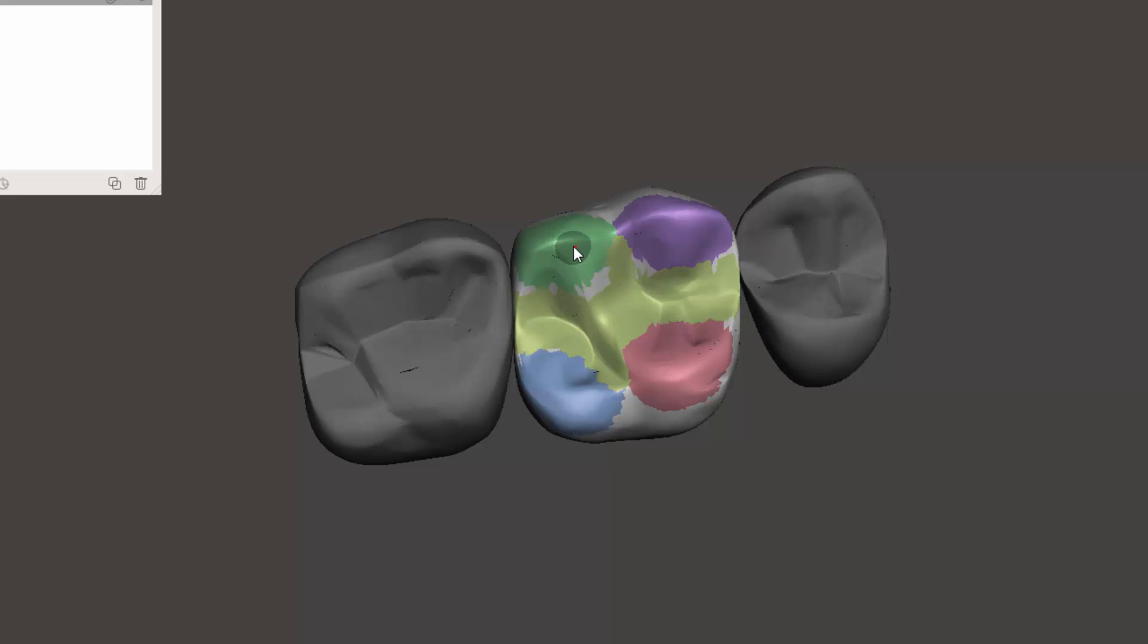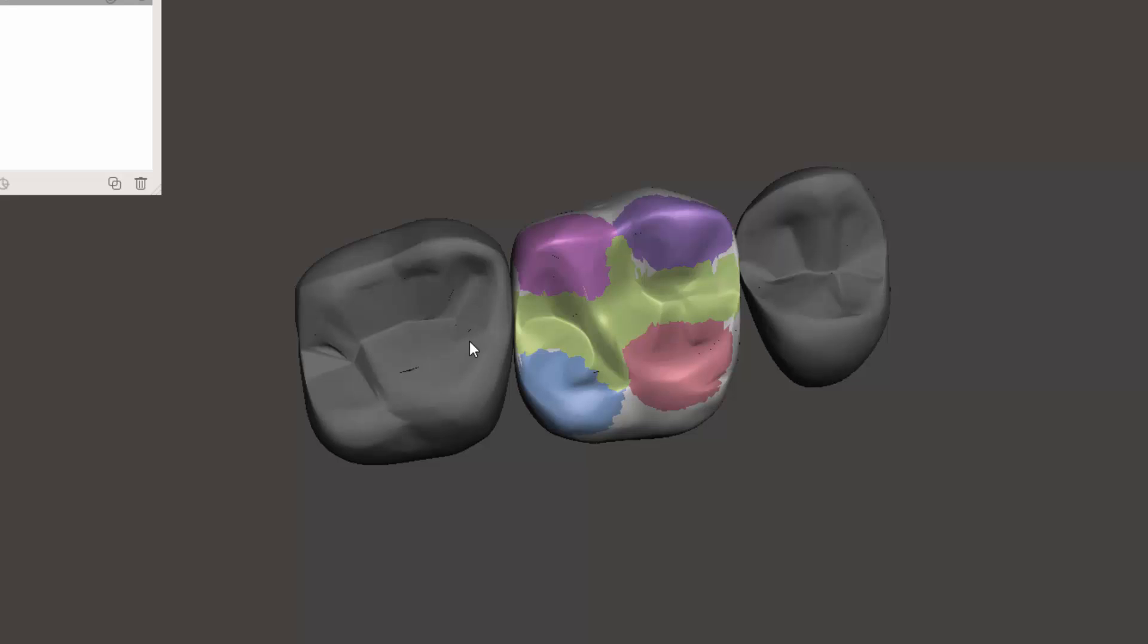You could actually, well, go ahead and hit Control+G. Let's hit select, double click this. If I double click the green, the entire green turns, and I'm going to go ahead and get the leftover parts that I missed. Then hit Control+G again. So now the spaces are pretty filled.